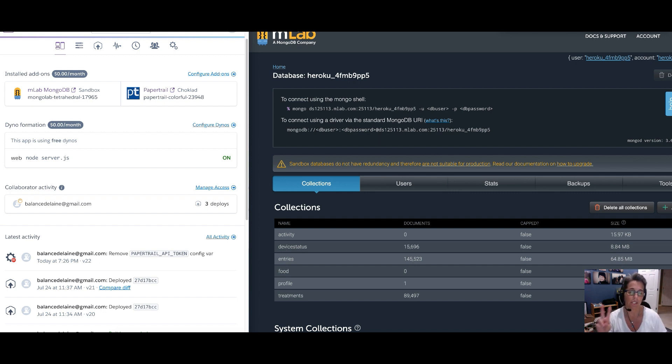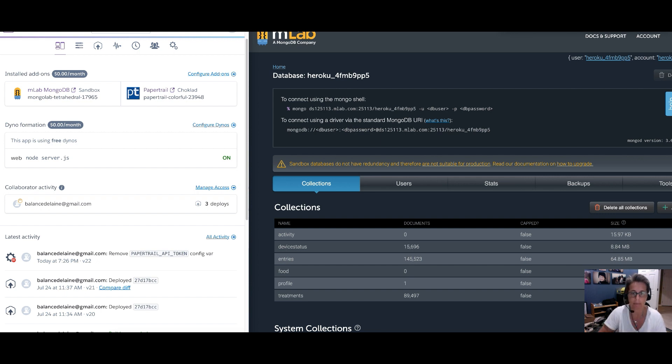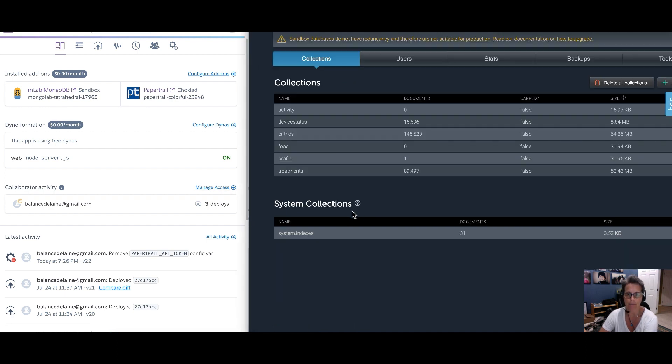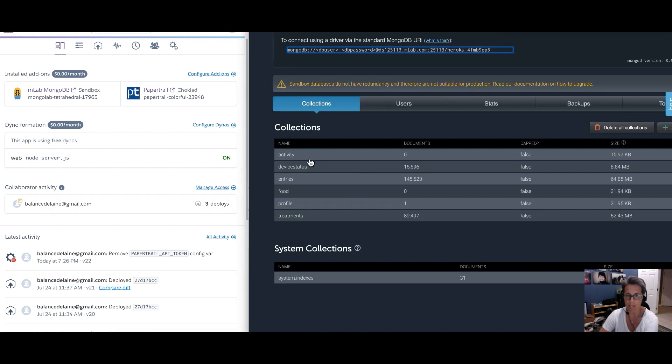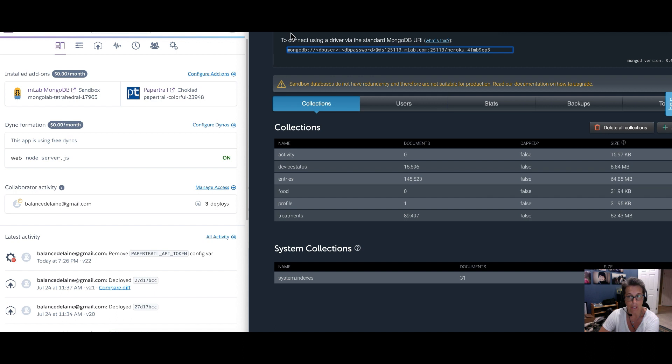And so we're going to do two steps. One, we're going to reduce the number of grains of rice. And then number two, we're going to sweep them all closer together so that they fit into a tinier space. So the first step is cleaning out some data space. And the way we do that is we can clear out some of the old data that's been stored in there. So let's go ahead and look at your database. How do we get there?